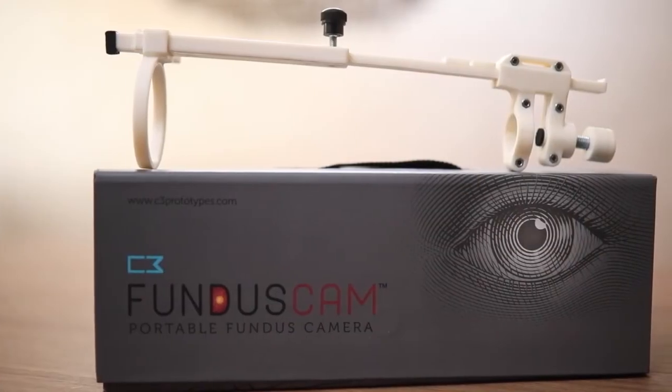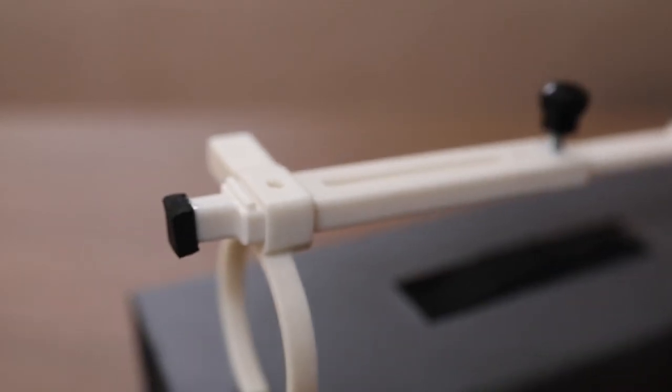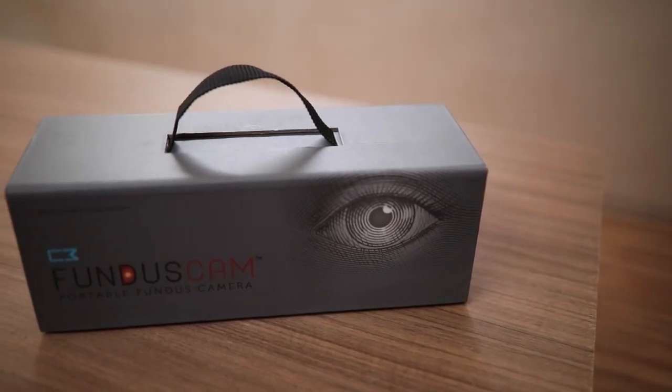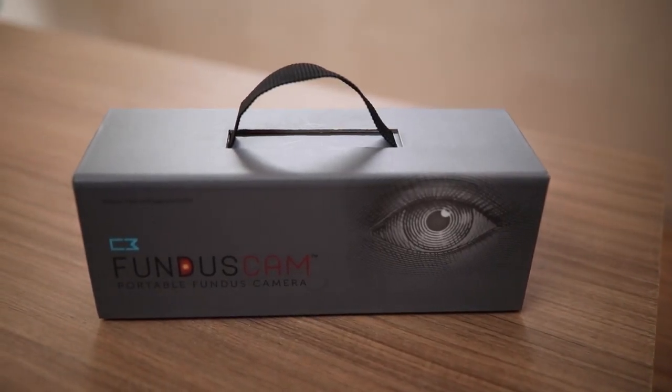With the development of this device, we will be making ROP screening affordable and accessible to all practitioners.